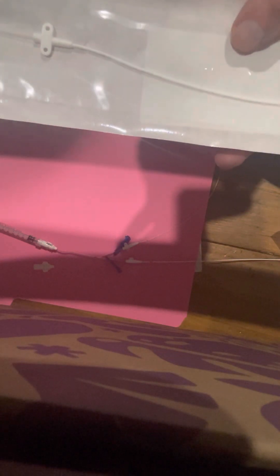This is the 3.8, which is incorrectly marked — it's supposed to say 3.5. Normally I will cross that off and put a 5. I need to go through and do that to all of them, but I just haven't had a chance to.